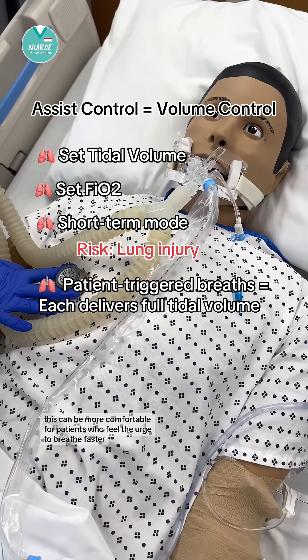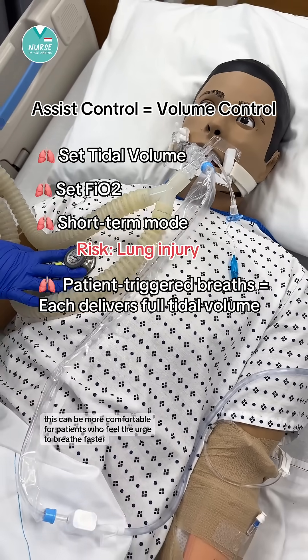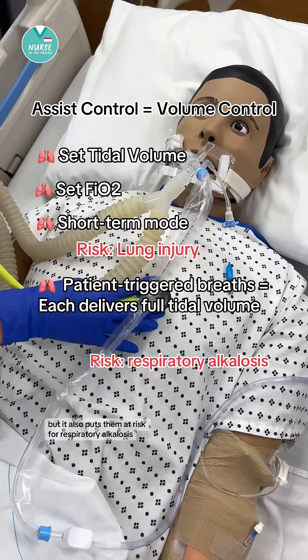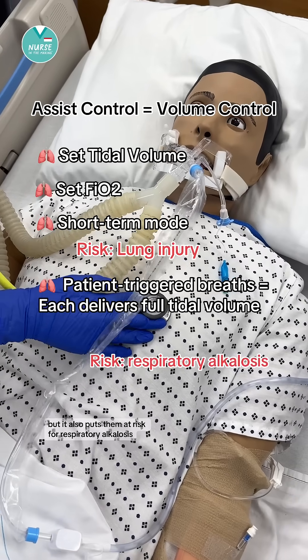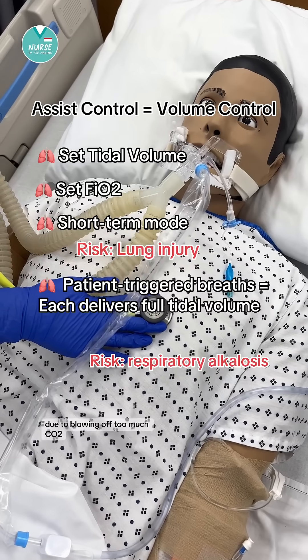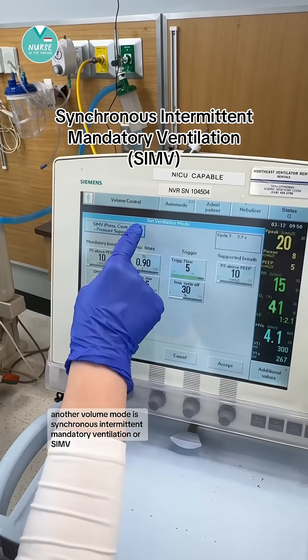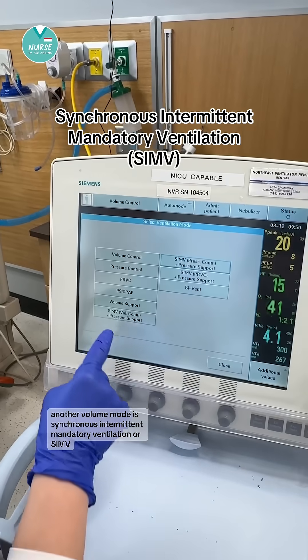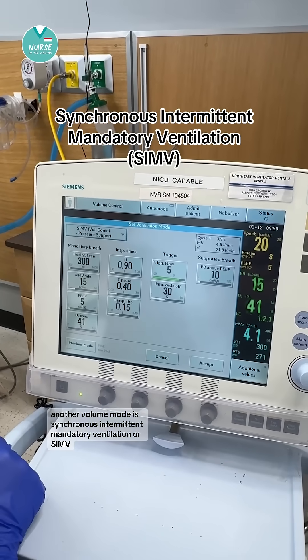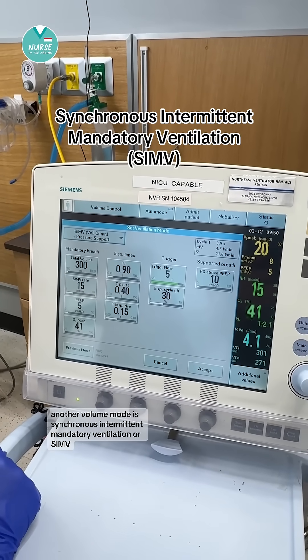This can be more comfortable for patients who feel the urge to breathe faster, but it also puts them at risk for respiratory alkalosis due to blowing off too much CO2. Another volume mode is synchronous intermittent mandatory ventilation, or SIMV.